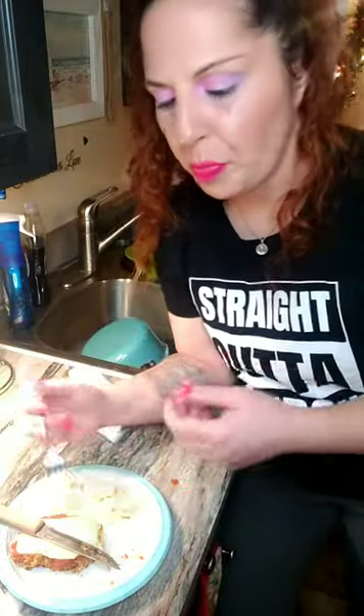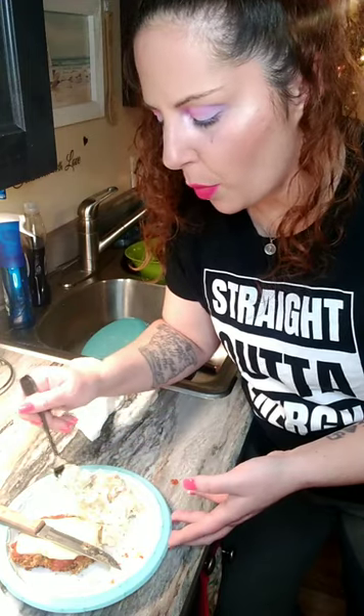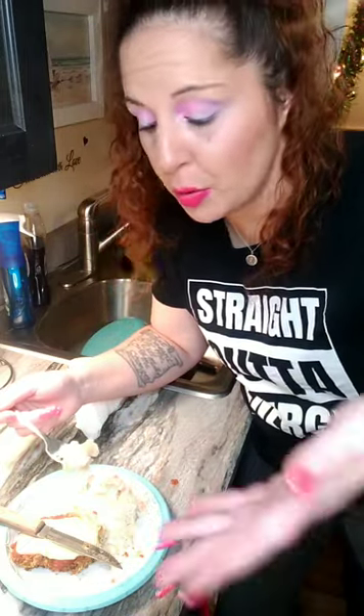I'm really surprised. If anybody wants me to try a store brand adhesive, tell me which one and I'll do it. This is my first store brand one I've tried. People want me to try the Walmart one, but there are like 20,000 Walmart ones, so give me a heads up on which one — unless you want me to try them all, we can get up in my mouth, you never know.